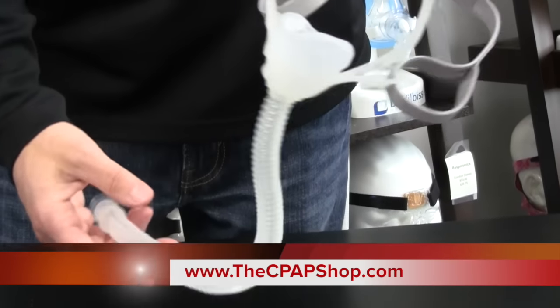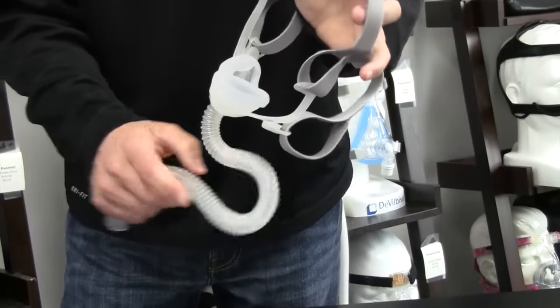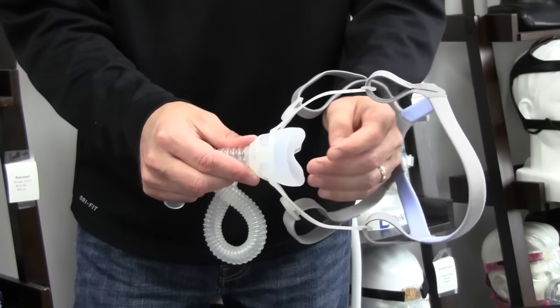As you can see, it's very lightweight, very small. It's extremely quiet, gives you a clear field of vision. There's no forehead pad or anything, so you can see perfectly. If you wear glasses or need to watch TV, won't be a problem with this.